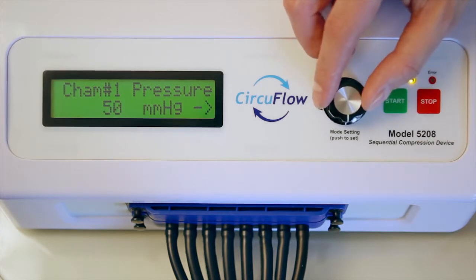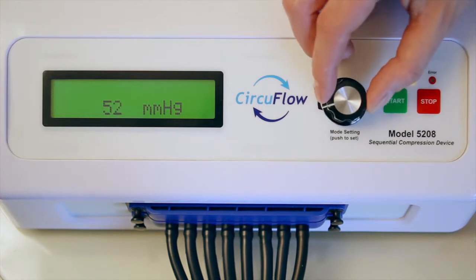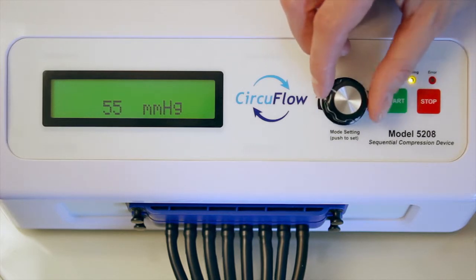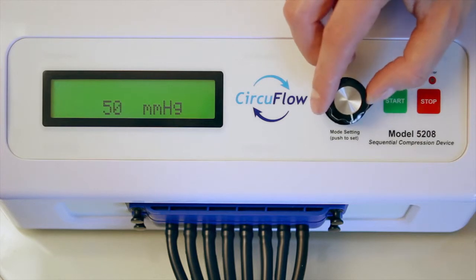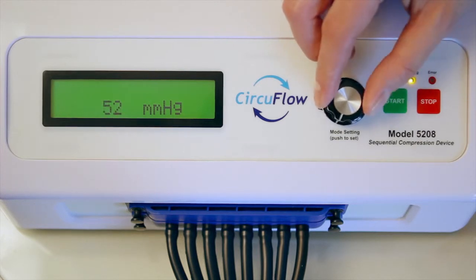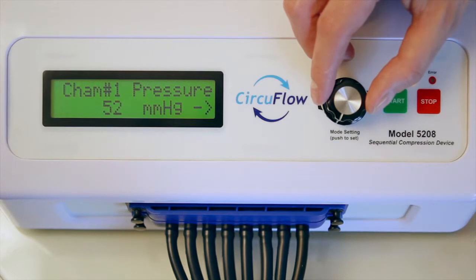Increase the pressure by turning the knob to the right. Decrease the pressure by turning to the left. The pressure can range from 20 to 100 millimeters of mercury. Pushing the knob confirms the new pressure and will take you to the next chamber.